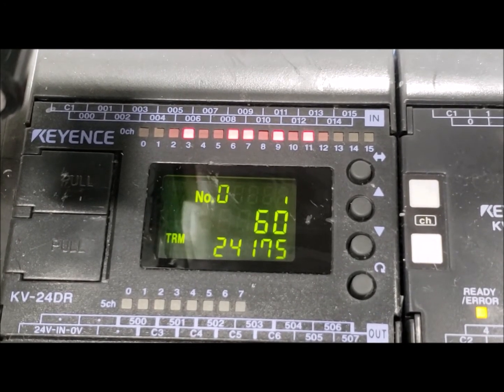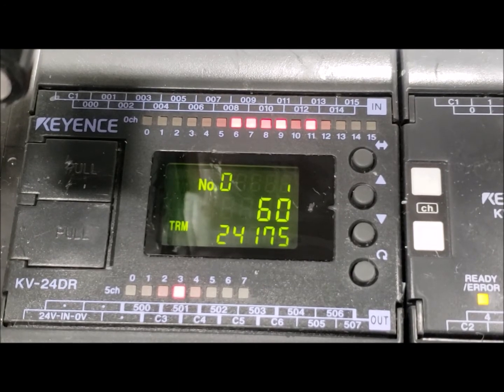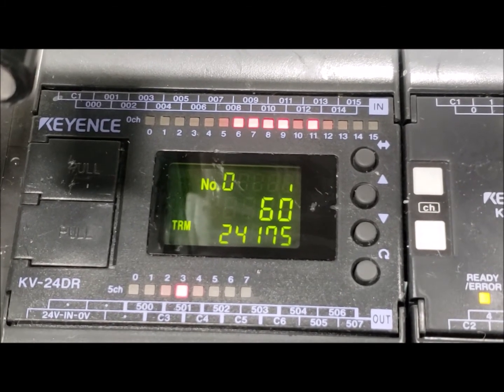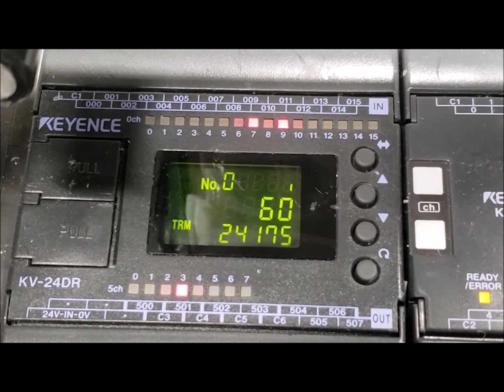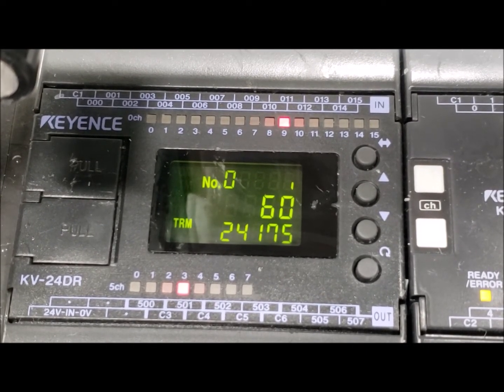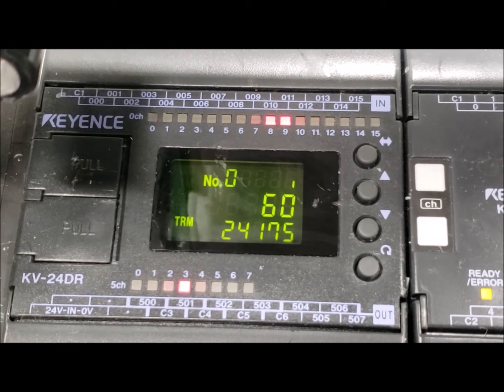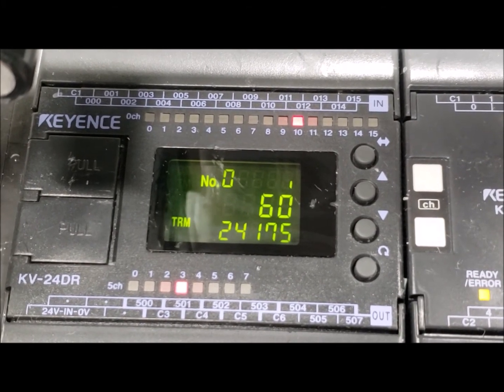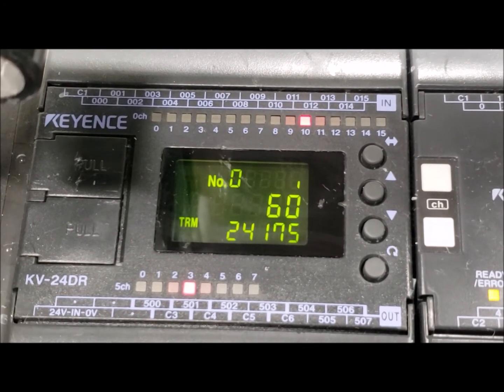Once that's complete, it's going to come back up and you'll notice that your coating cycle complete lamp is flickering. That means your lens is done and ready to be put into the cure unit. You'll open your door — notice eleven turned off. You'll reach in and grab your lens. You'll flip the vacuum chuck off — you'll notice 6 turned off as well as 7. So there's no more vacuum signal; inputs 6 and 7 are no longer going to your PLC. Once you've removed the lens, the spindle will move back over the wash station to its left and up position.